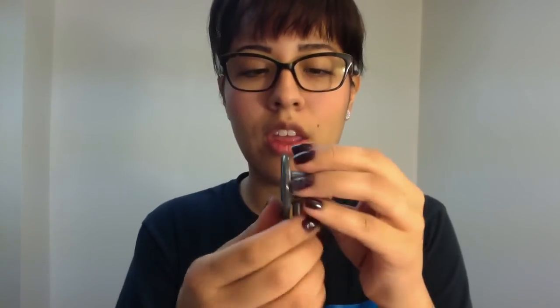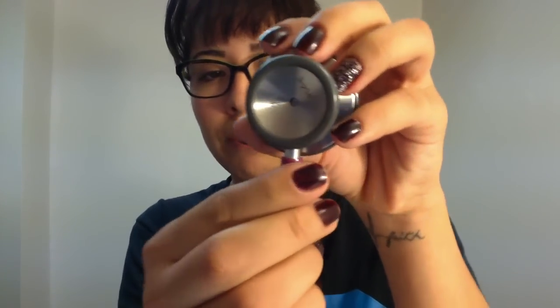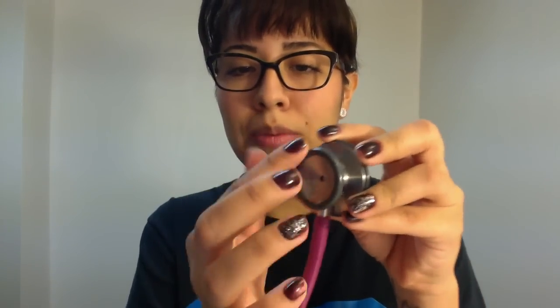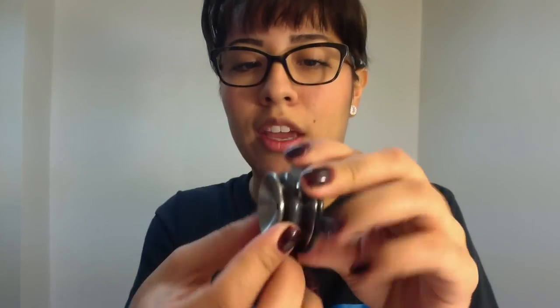I clean and wipe it all down like this. When I come to the bell piece, I'll wipe it in this direction — start from the middle and out. With this piece, you want to be careful that you're not overly squeezing the wipe so that it drips fluid inside of that little hole, because that might interfere with your listening if it's wet in there. Make sure your bell is closed before you clean it too.